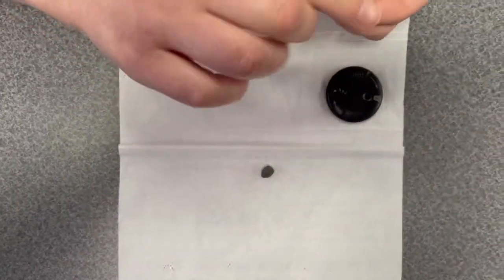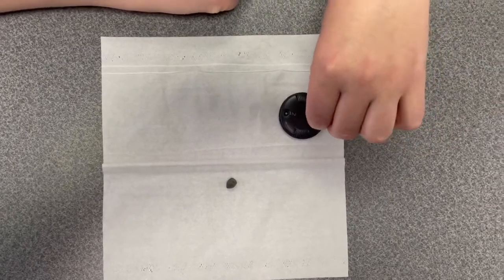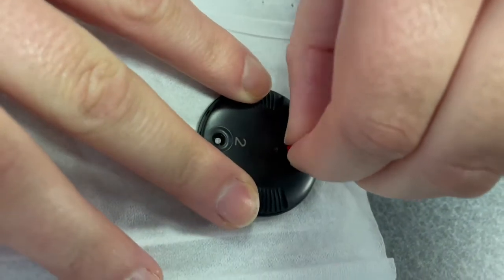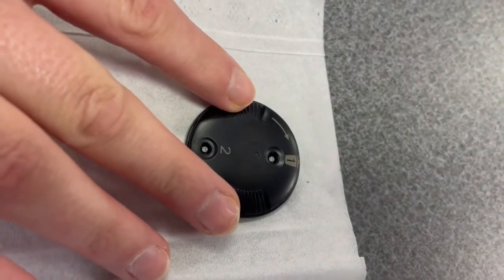Take the end of your receiver that you just took the dome off of, push it down in slot number one. You can feel it click and pull it out. The old wax guard should be in slot number one.